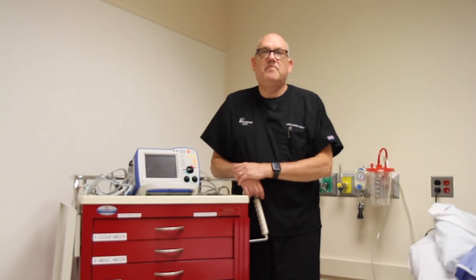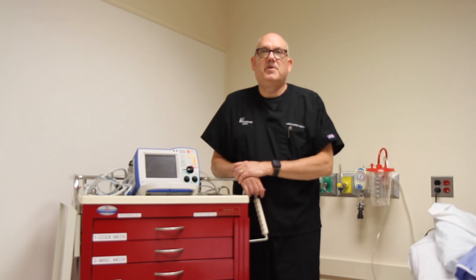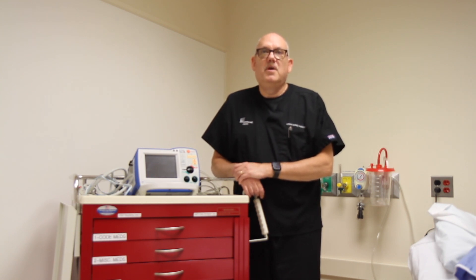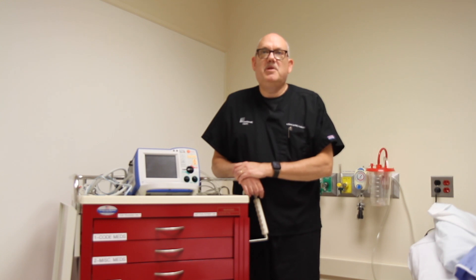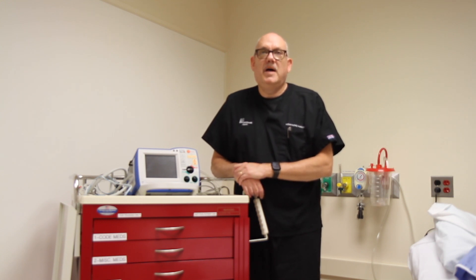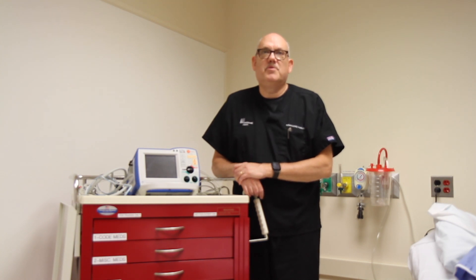The monitor defibrillator is a relatively simple device. It does two things: it receives electrical signals from the patient, which are displayed on the screen as an ECG tracing, and it can send electrical energy through the chest wall to the heart.